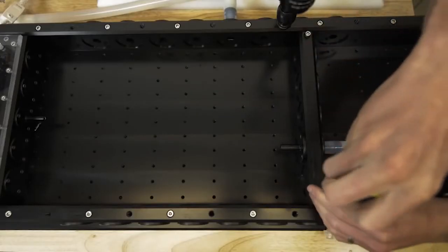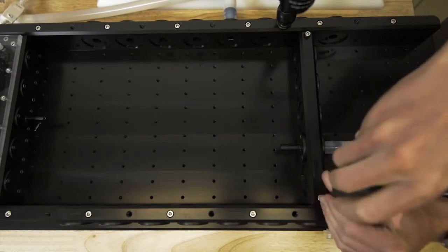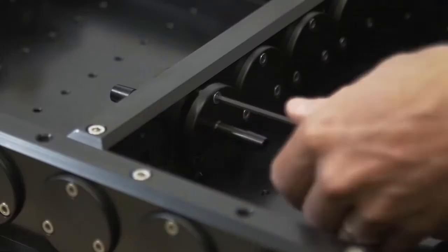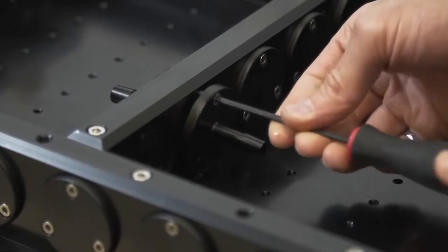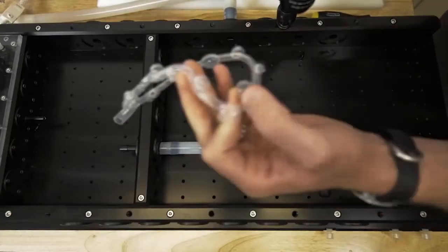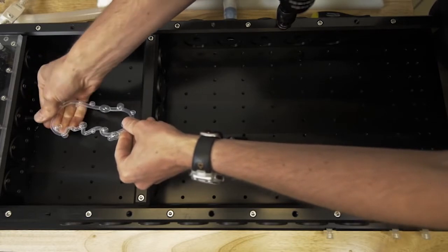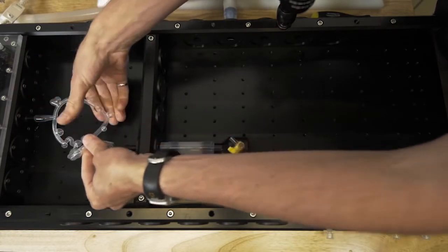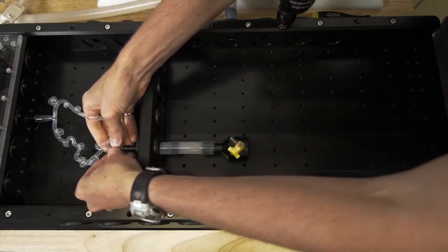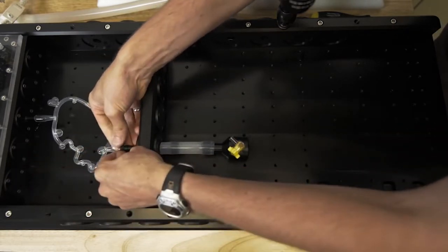Setting up your Vivitro Endovascular Simulator is straightforward and simple. The tray is easily reconfigured to accommodate different model sizes and connection types. It can be used with various models for a variety of transcatheter or surgical vascular interventions.